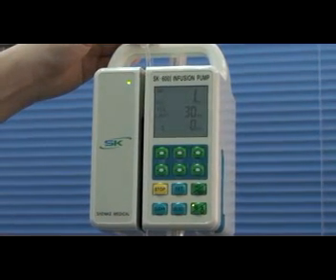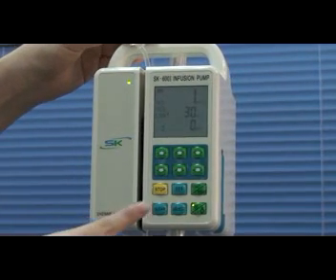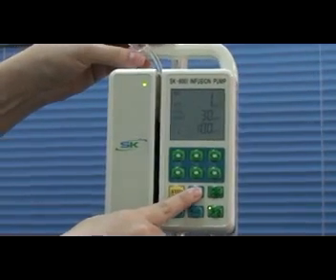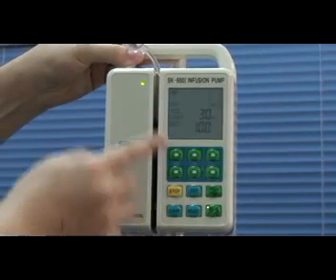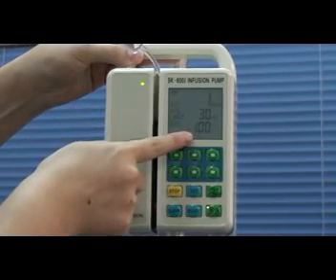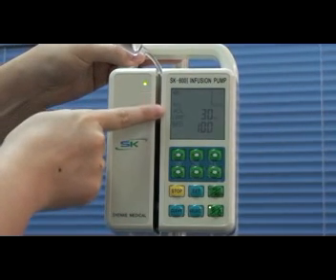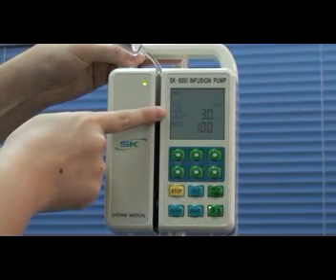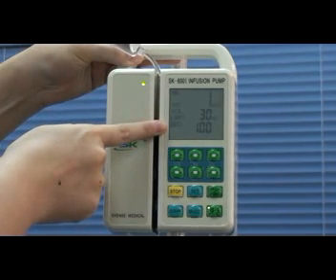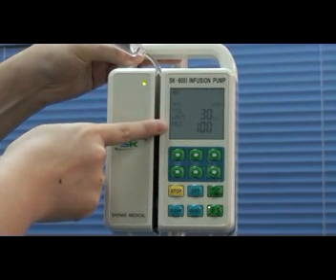Step 2, basic parameter setting. Press set key. You will see three parameters here. The first one is flow rate. The second one is volume limit. The third one is bed number.